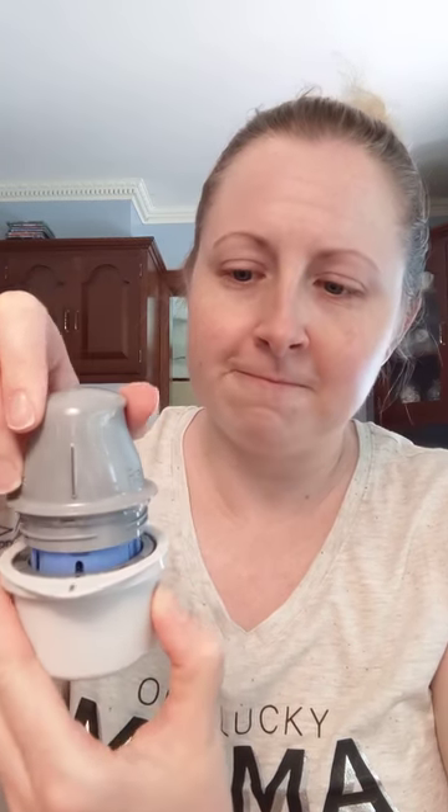Once you open it up, you can see there's a line on the applicator and a line on the sensor — that's what's in there. I know it's a little creepy to look at, but it's not bad. The line here needs to match up with the line here. You put it in like that, press down on the table, and you're all set — now it's in there. When you pull it out, you can see everything you need is loaded in.